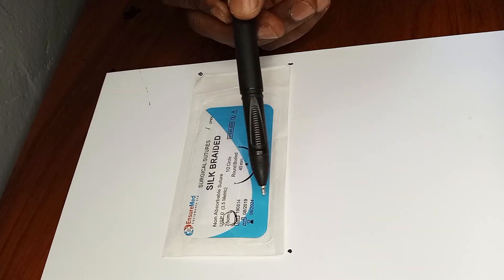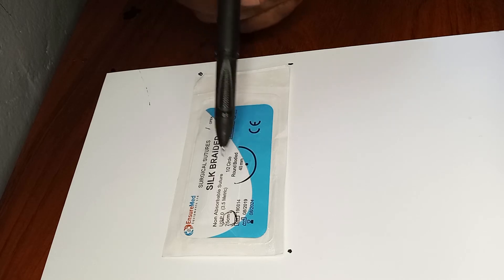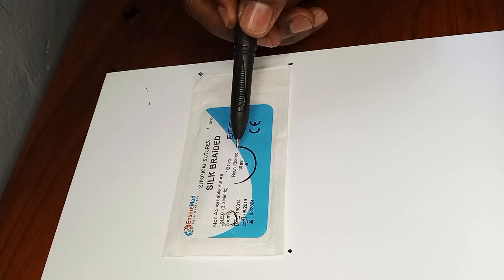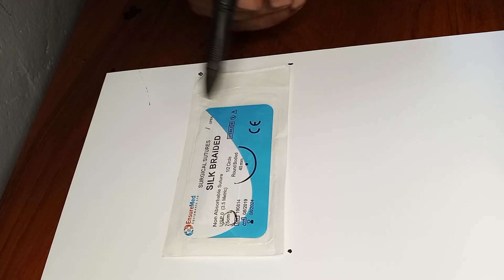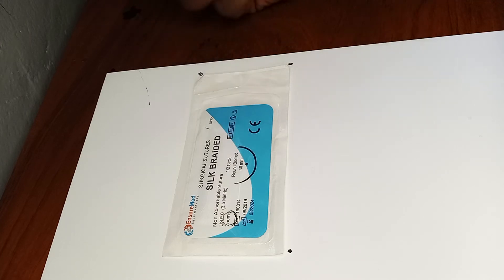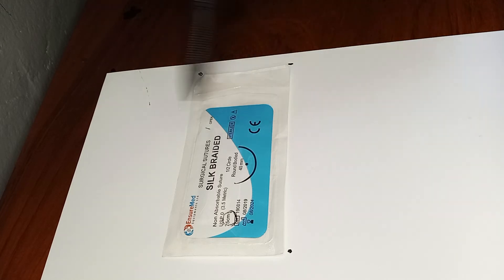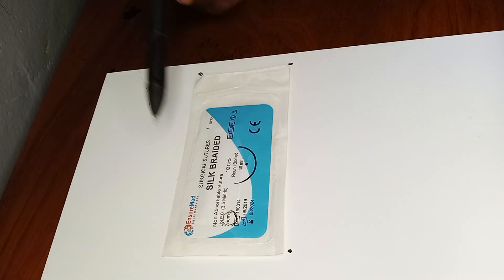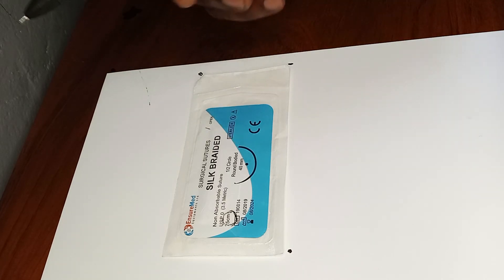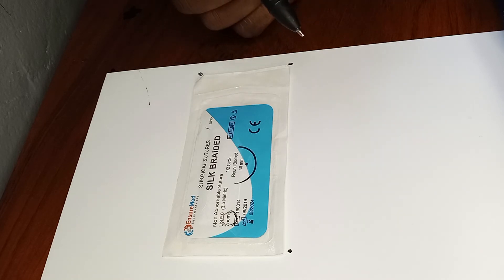The silk thread is shorter than the chromic, which was 90 centimeters, so before use you'll already know the thread length. There's also an expiry date and manufacturing date on the pack. It's a half-circle, round-bodied needle — atraumatic, just perforating the tissue. The needle length is four centimeters. Importantly, silk is braided and multi-filament, so when expecting infection it's not a good suture to use, as the braided spaces act as hiding places for infection.